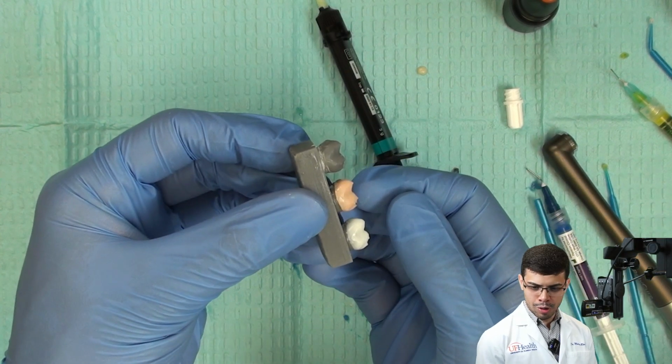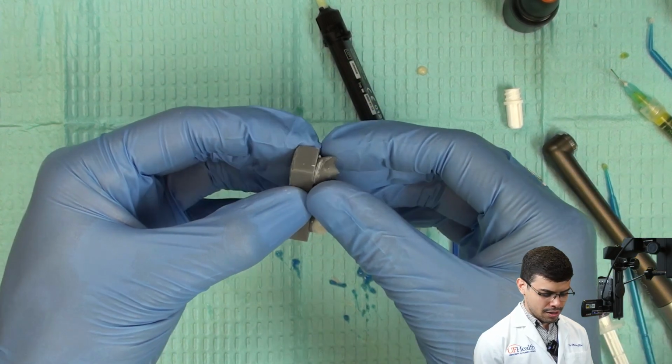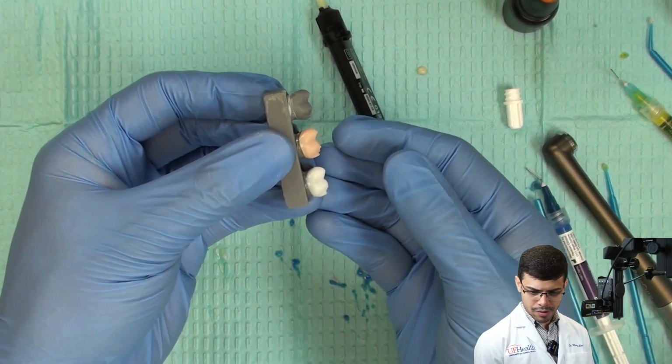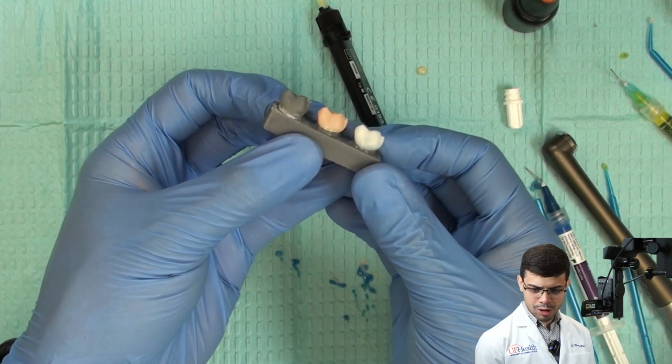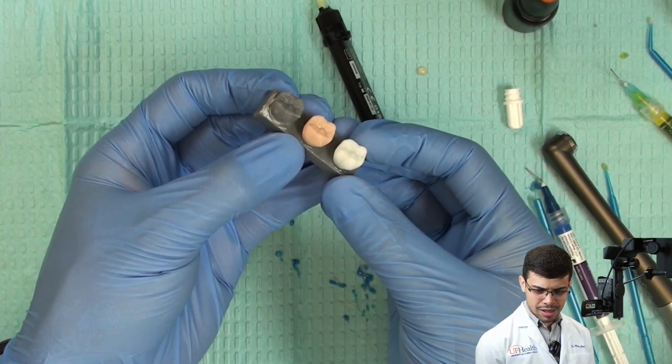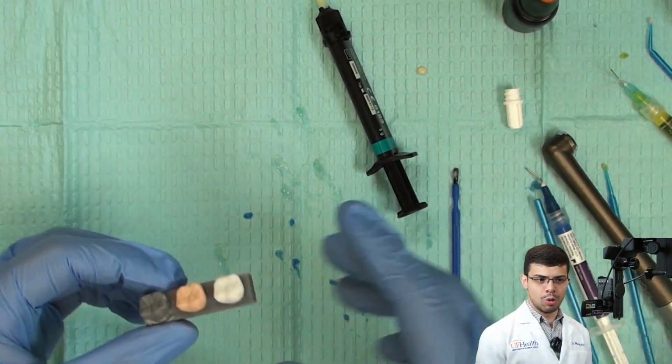Or you can also do a quick testing here. So everything's set, so have fun. Try to remove the crowns, okay? I'm not gonna get this and remove now, but try to remove and see which one you think is gonna be the easiest one to remove. All right? So have fun.